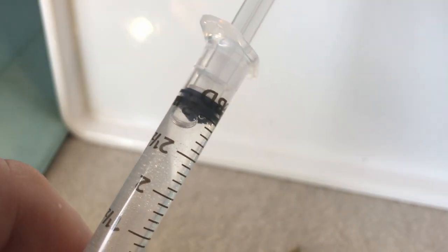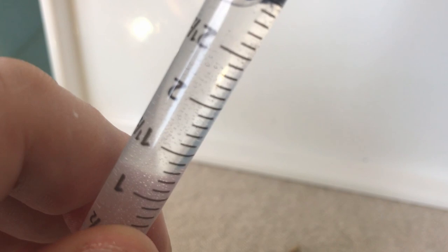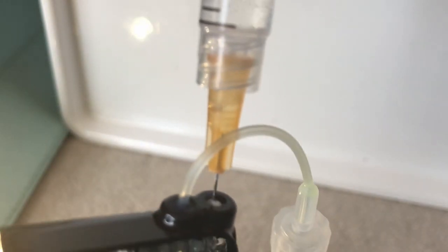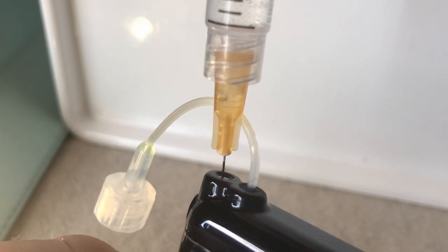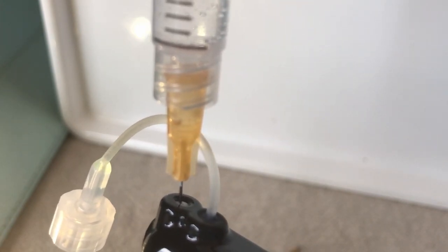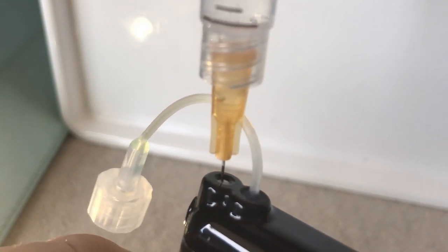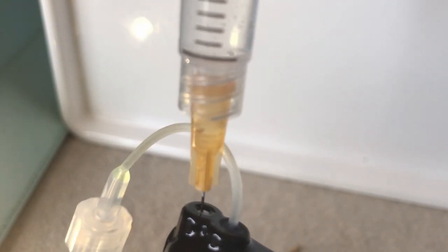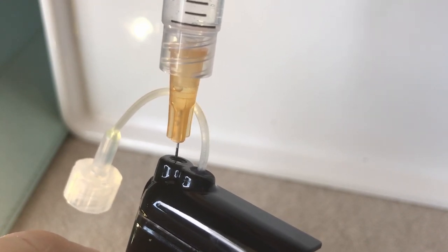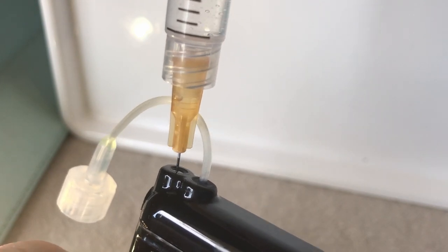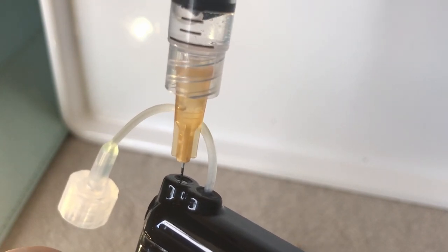I'm pretty certain that all that air - I'm flicking it so the air is up top. Remember, some people don't even remove the air out, so we're not hurting anything by doing this. And what happens is when the air - what we look for is when the air reaches that connector part between the, you know, where the syringe and the needle meet, you can pick that up. You can see that. So what I'm going to do is - as you know, I've not disconnected the syringe. I'm going to push, pushing in. It's hard getting it all far enough away from the camera to be able to see too much, but I'm getting close to it. Now you can see that bubble of air.